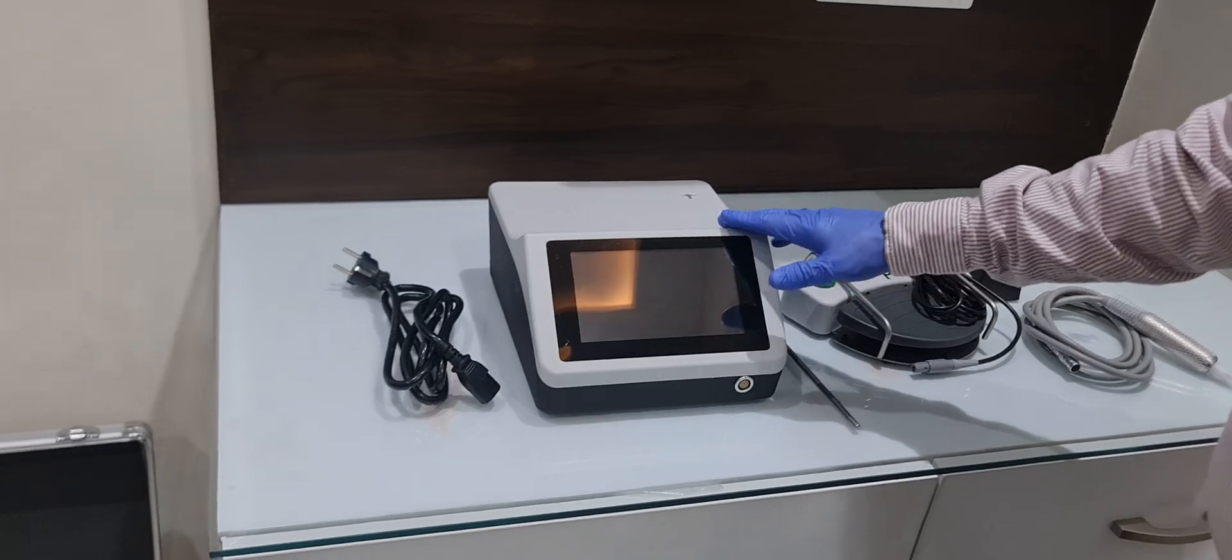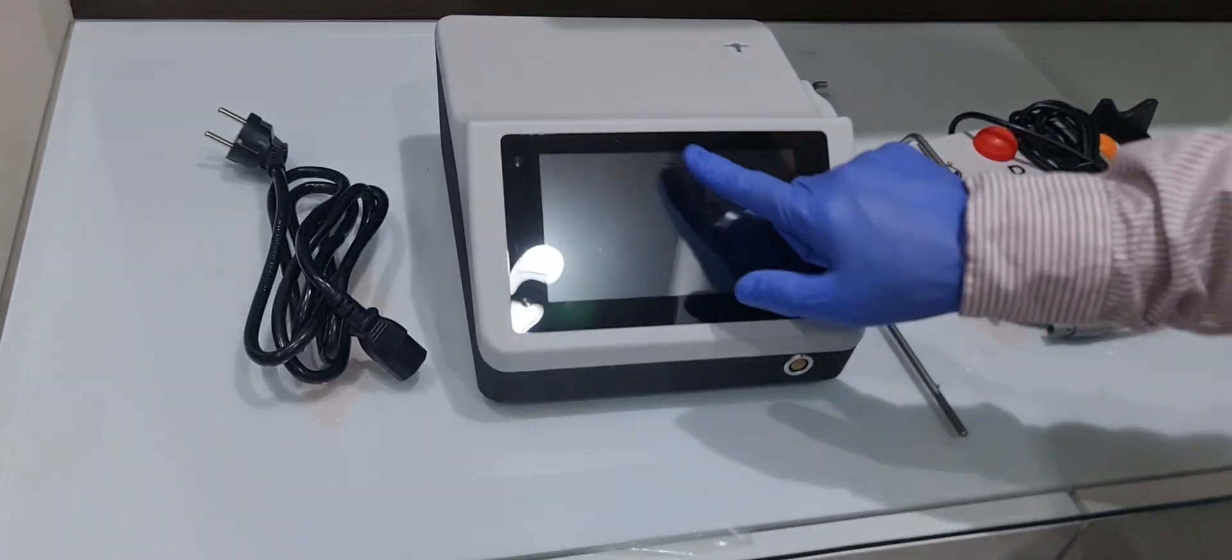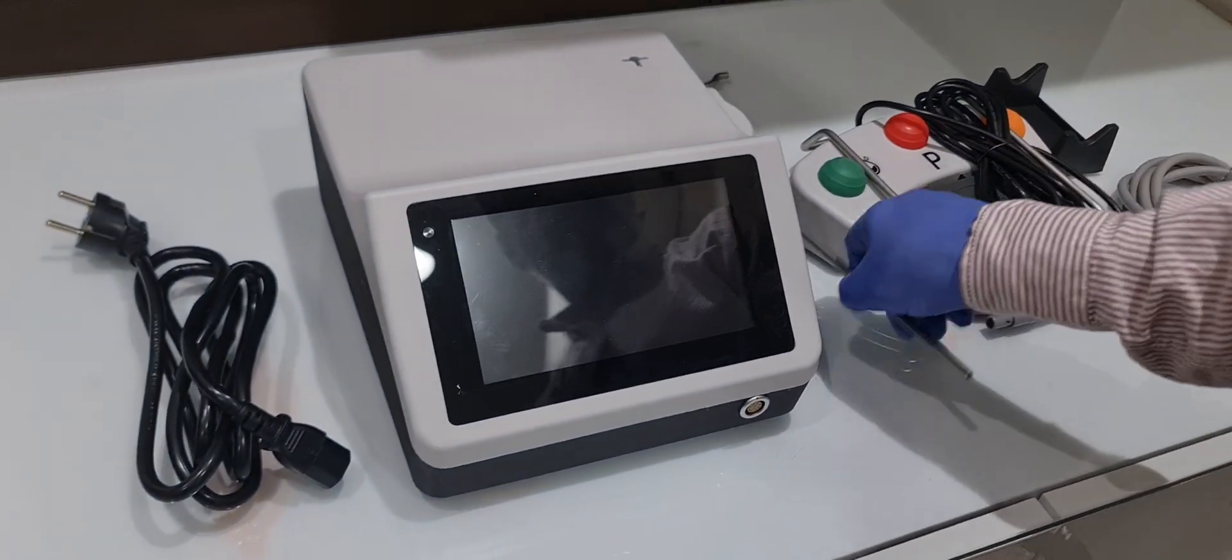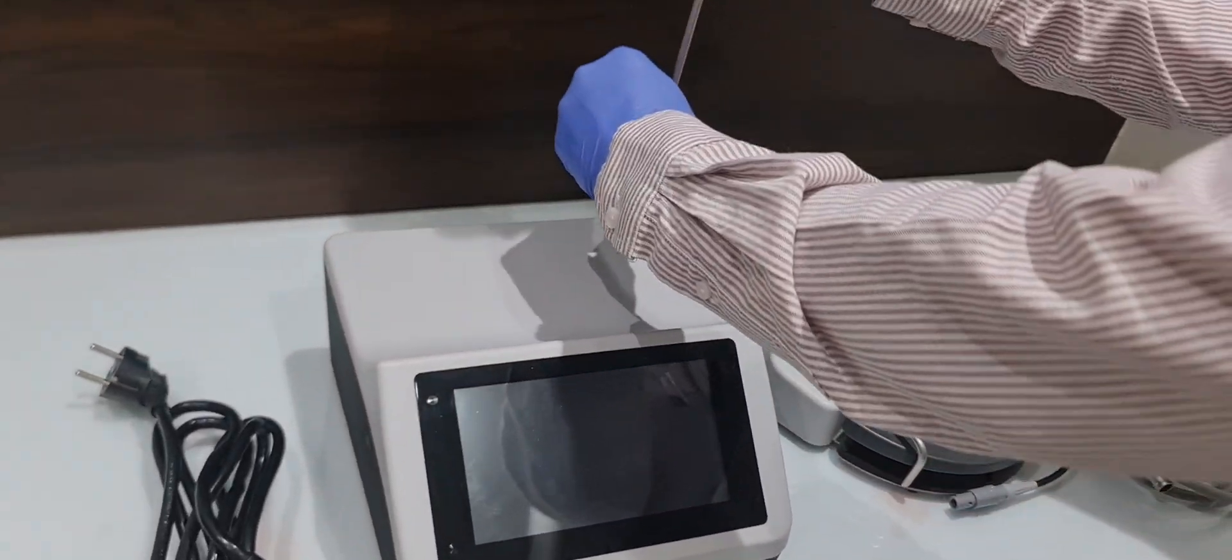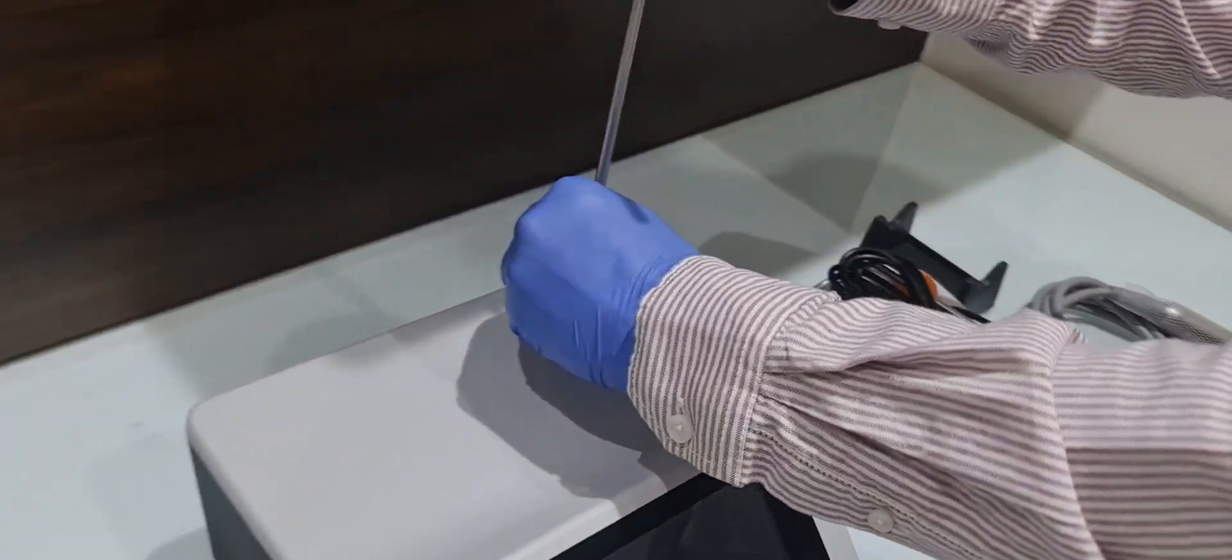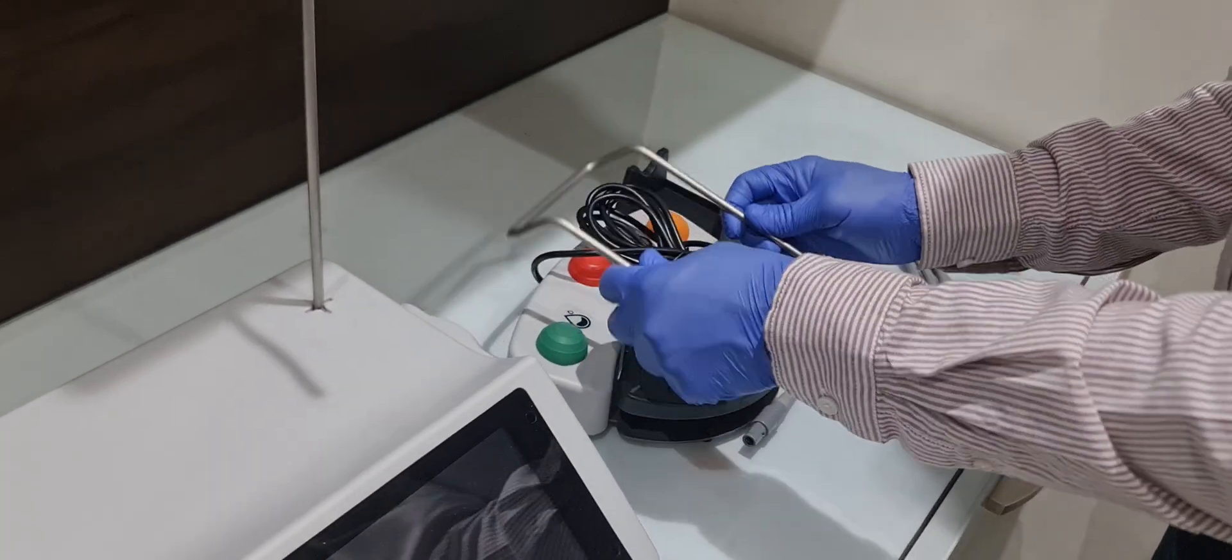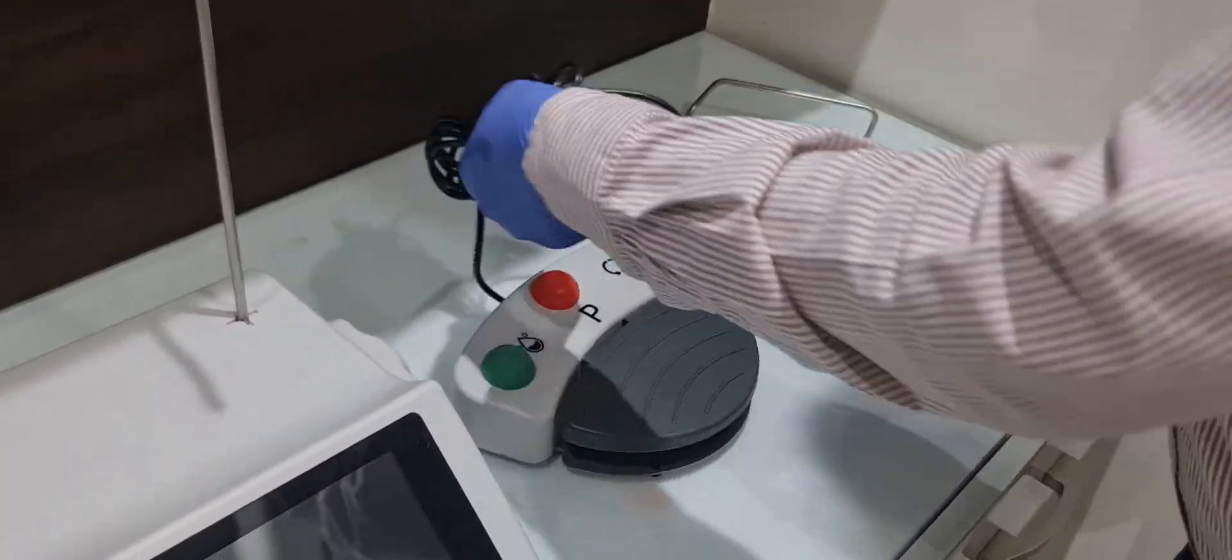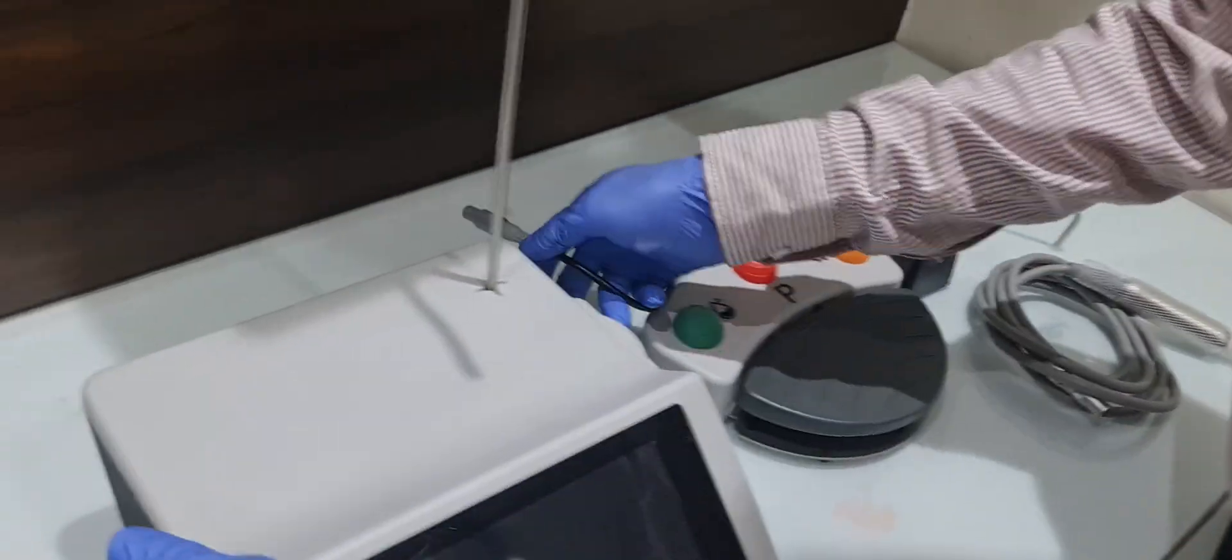This is one of the best machines with a touch screen. I will show you how it's working. The line stand, foot control you can see.